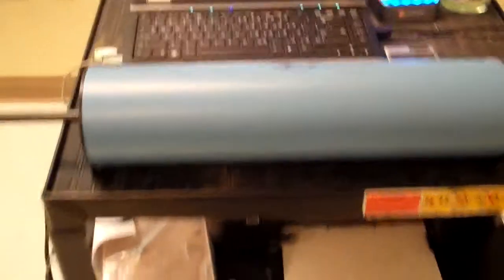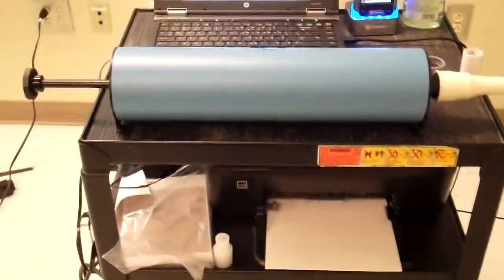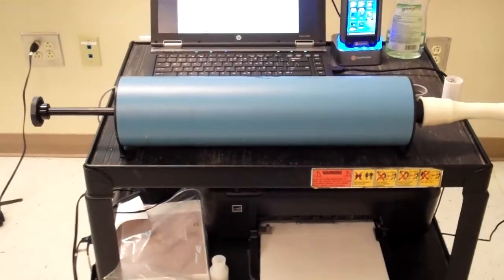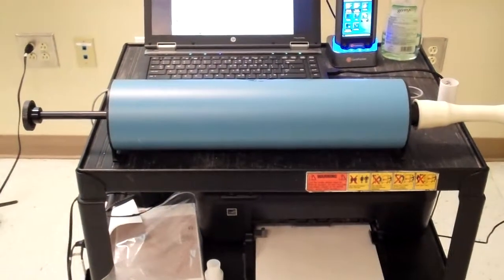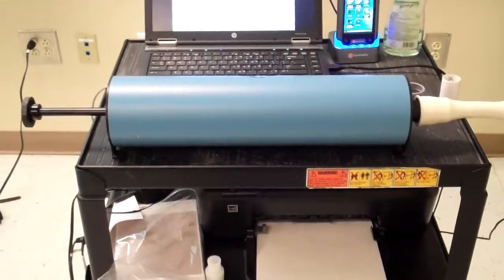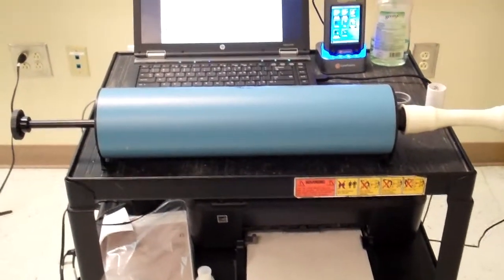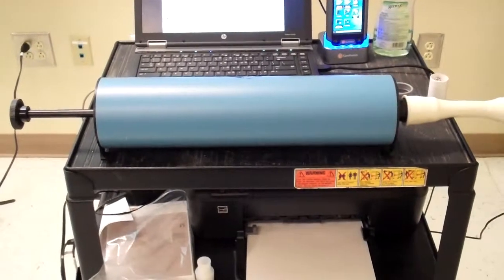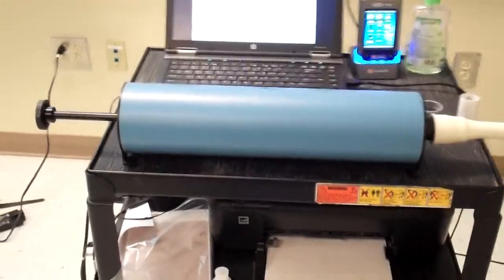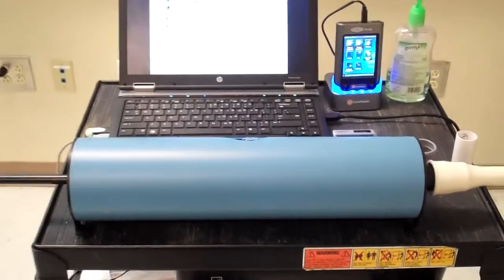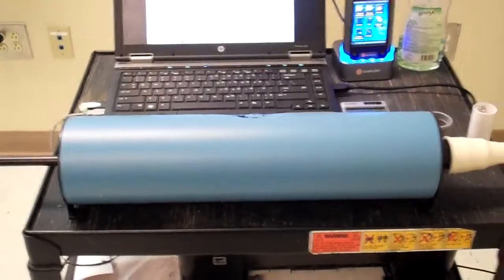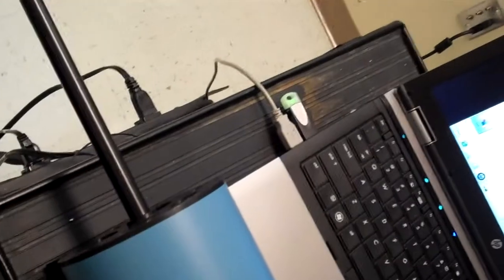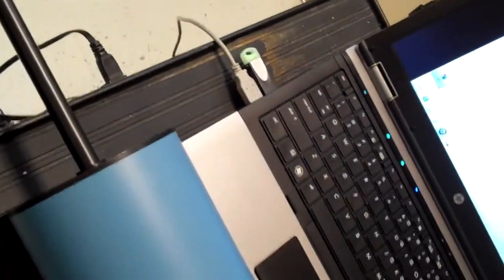You will see in front of me we have a 3-liter calibrated syringe. It has already been equilibrated to room temperature. It has been in the room for almost two hours, but we need to make sure for at least 15 to 20 minutes in the room with the plunger being pulled in and out so that we get room air trained in.